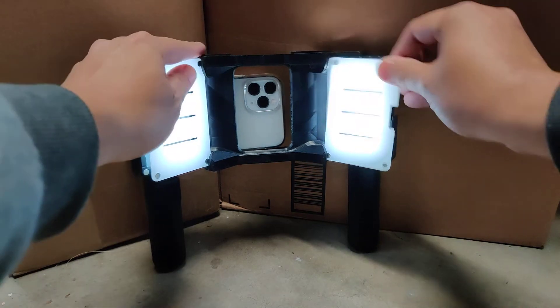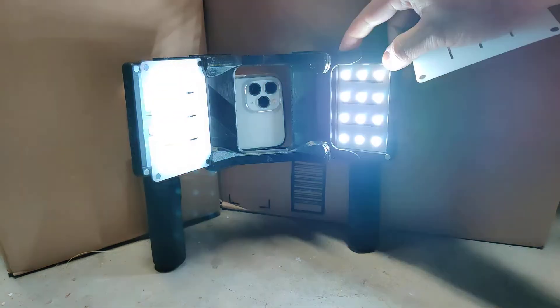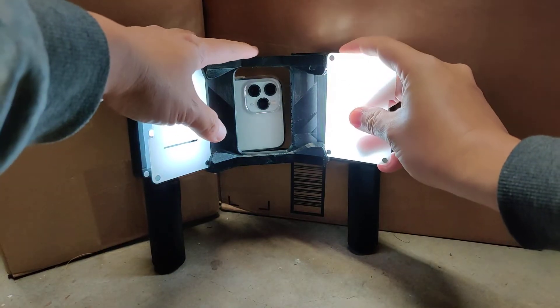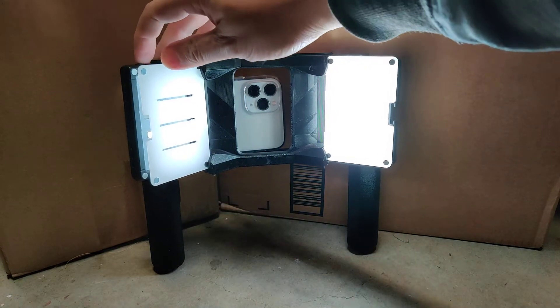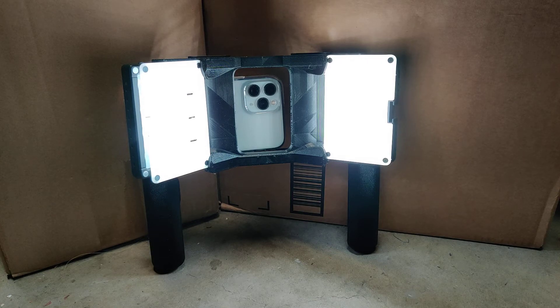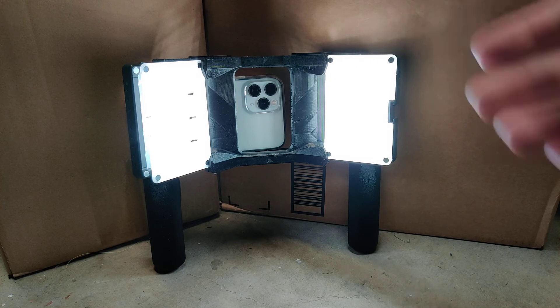What that means is that you just have the bare LED lights. The bare LED lights — what's the problem with that? One, it hurts your eyes more. If I were to turn this up to actual working brightness, you'll see that that's eye-searing. So your patients aren't going to like that as much. These are still bright, but it's much kinder on the eyes when you have a single panel — a single wider-looking light source — than if you were to have separate LED elements. The other thing is when you look at the reflections in the teeth, especially if you're doing nice veneer work, you'll notice that with separate LED elements you'll get an orange peel or ripple pattern, which you will not get as much with a flat diffused light. And that's why professional tabletop photographers and product photographers always use diffused LEDs.